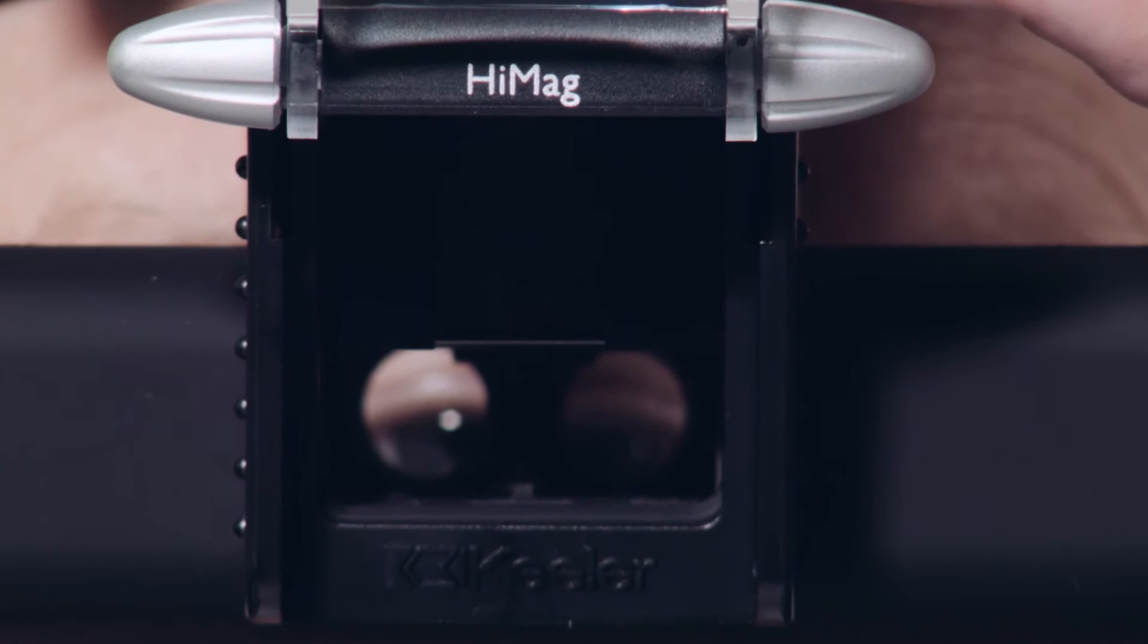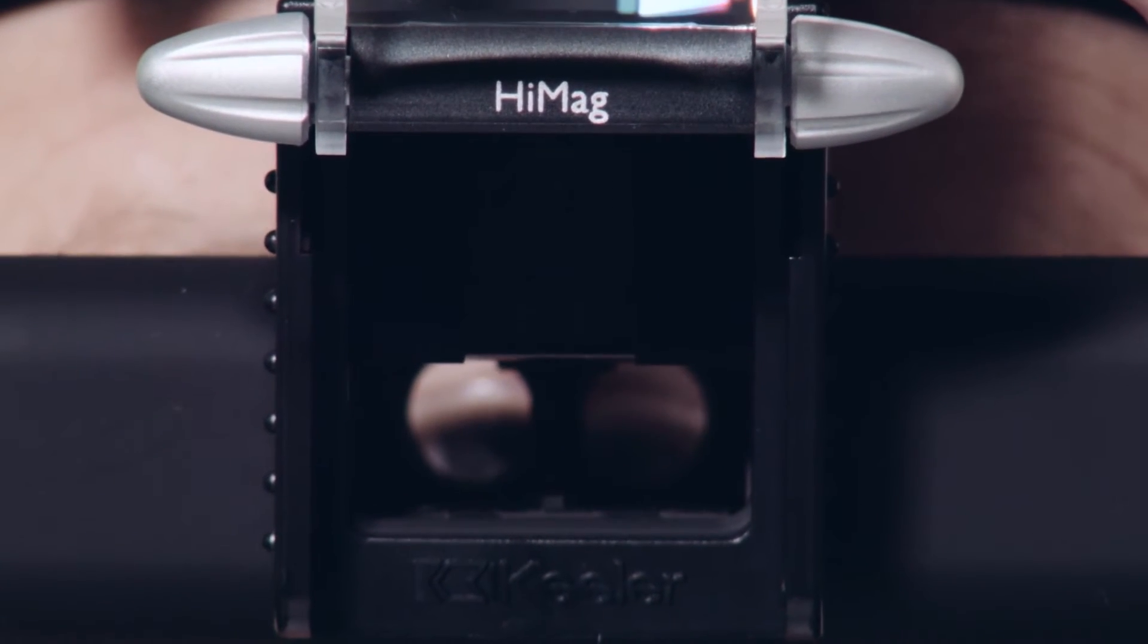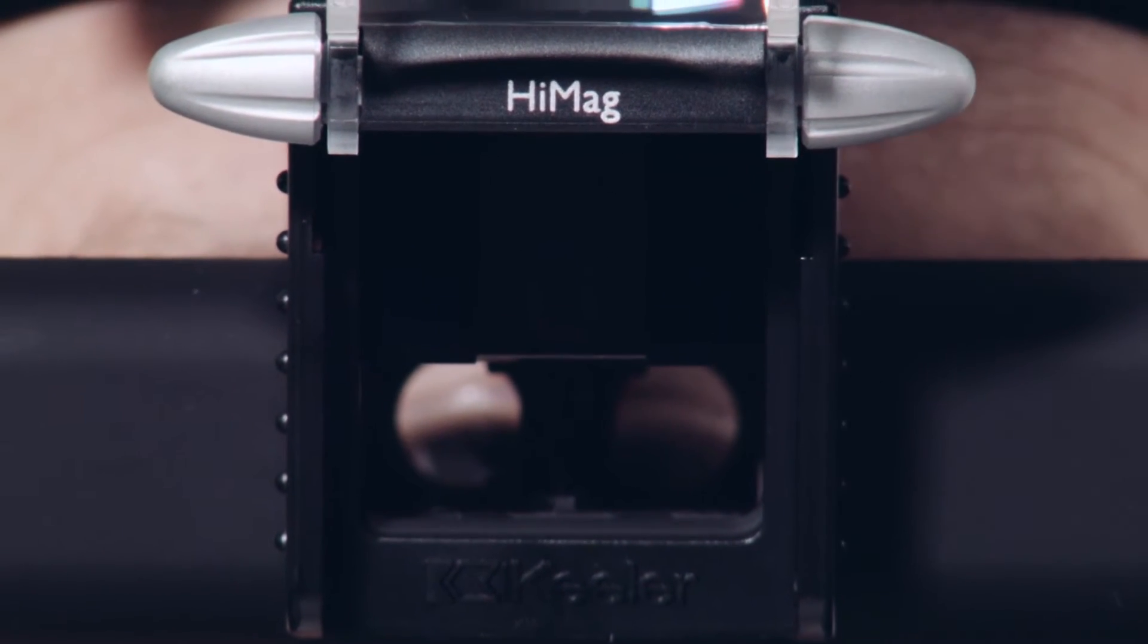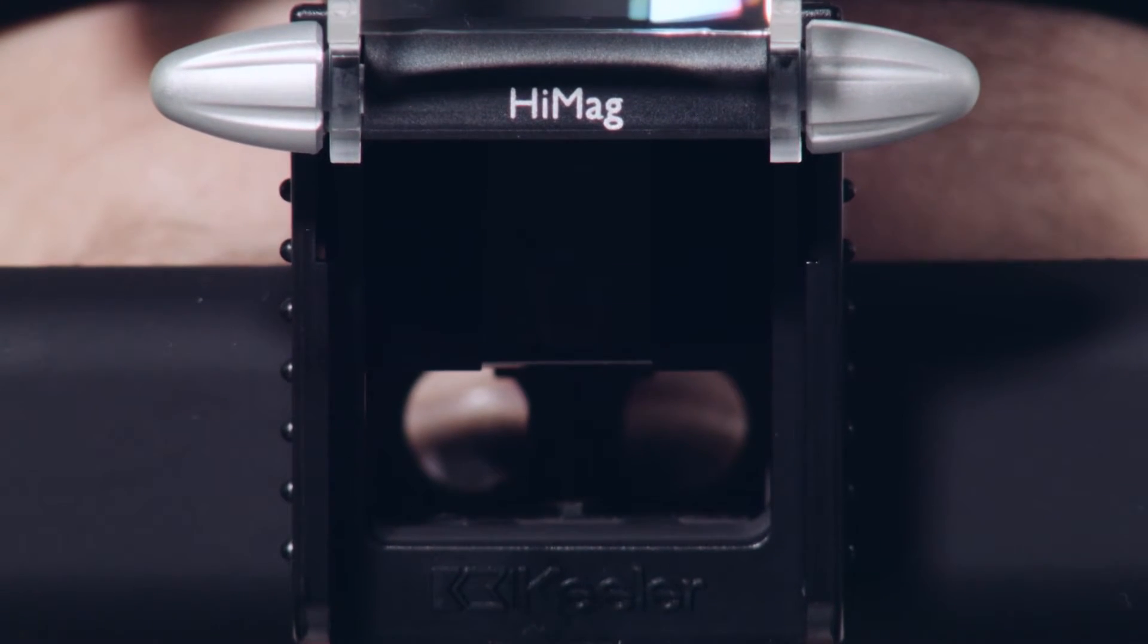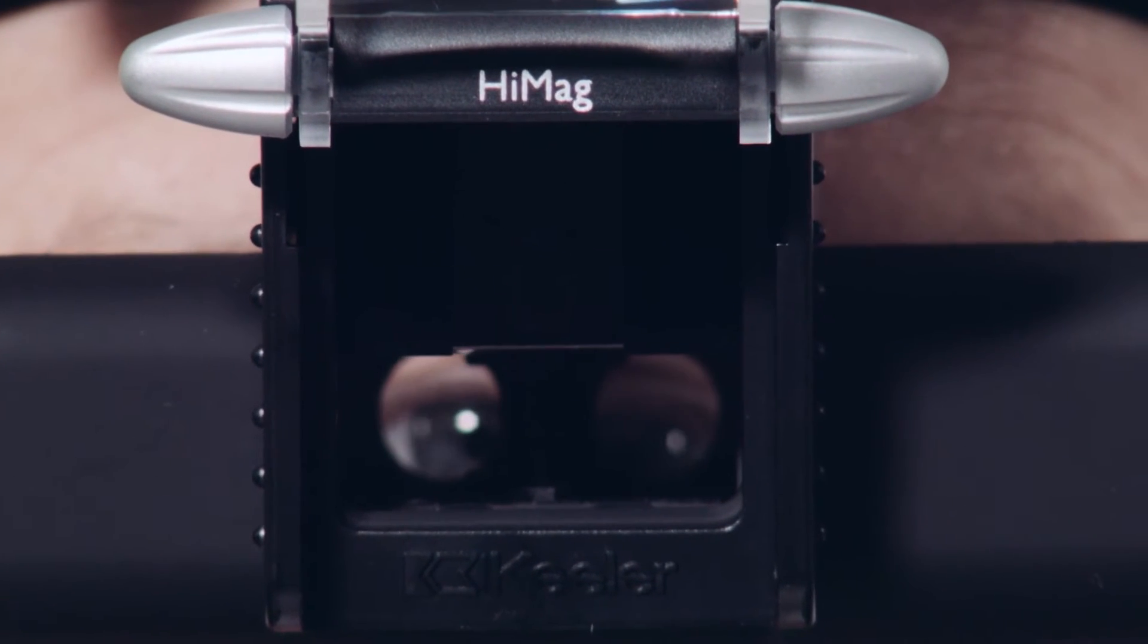The patent intelligent optical system ensures that as size changes, the mirror and optics automatically adjust and converge to maintain the highest level of stereopsis.